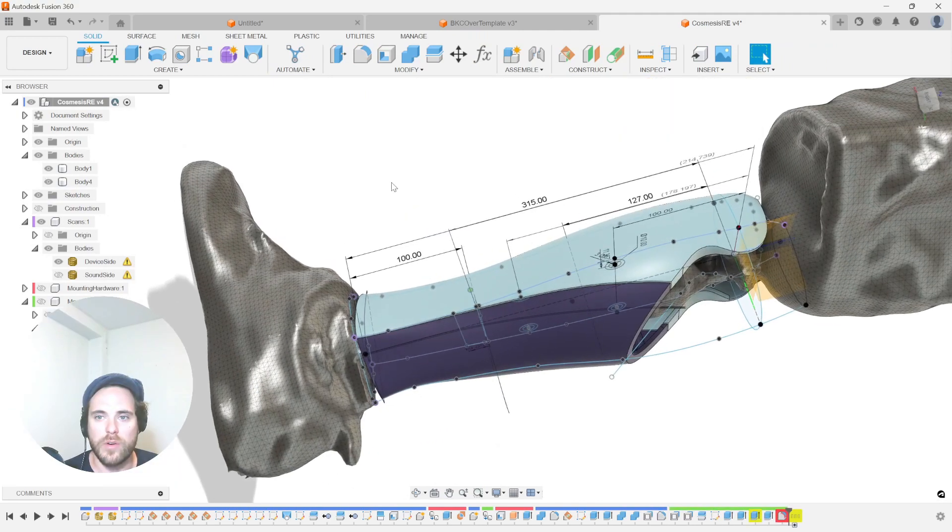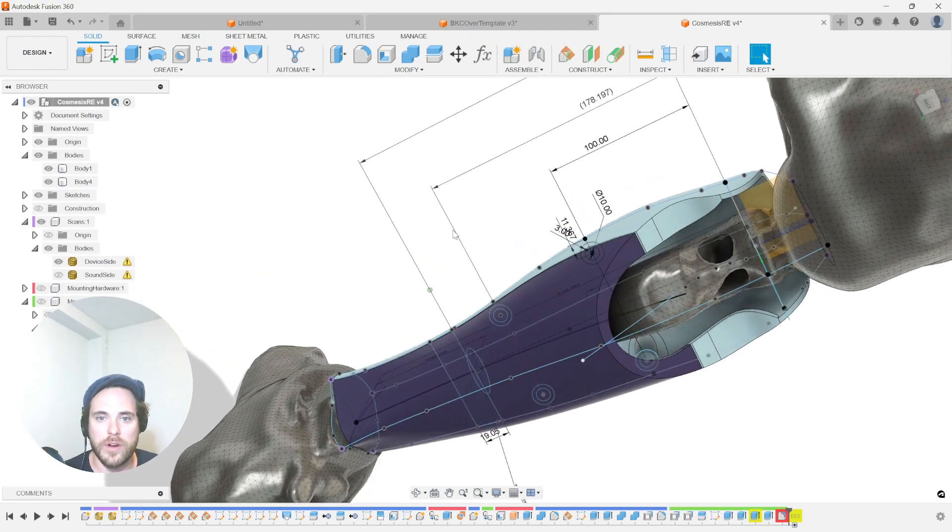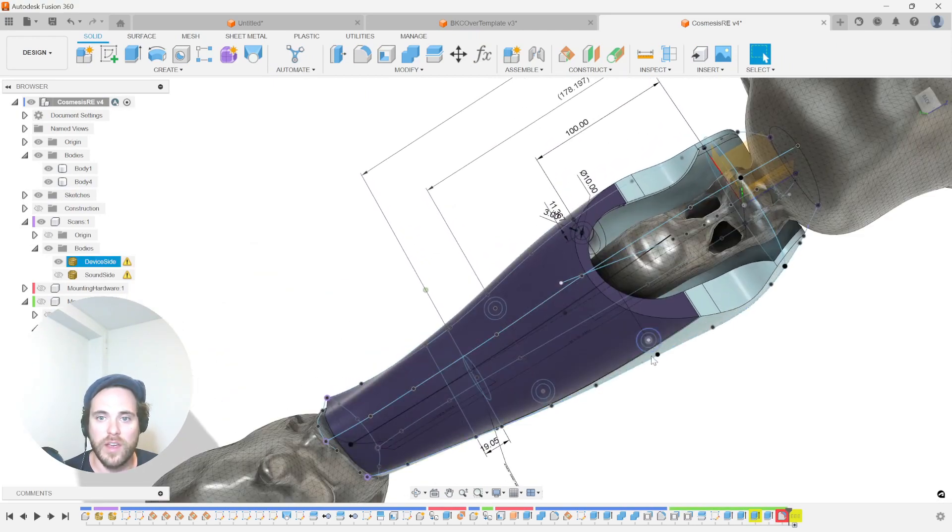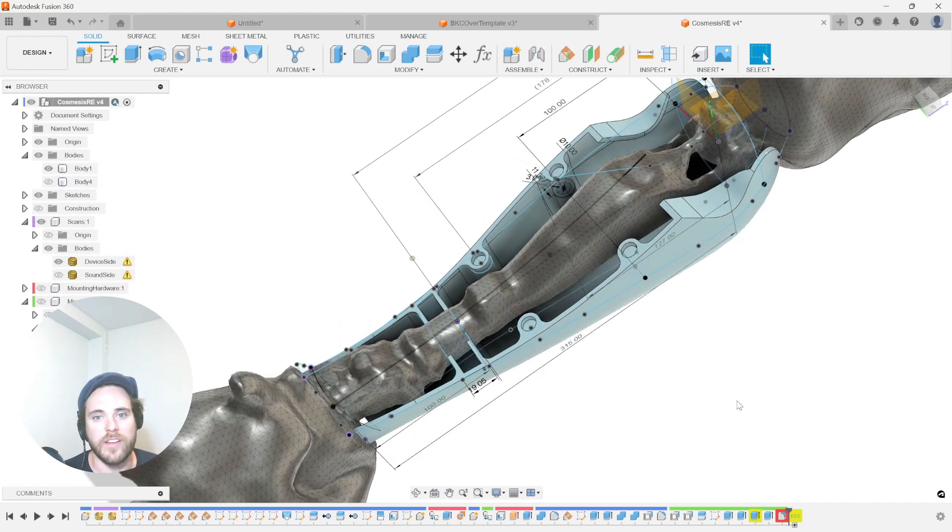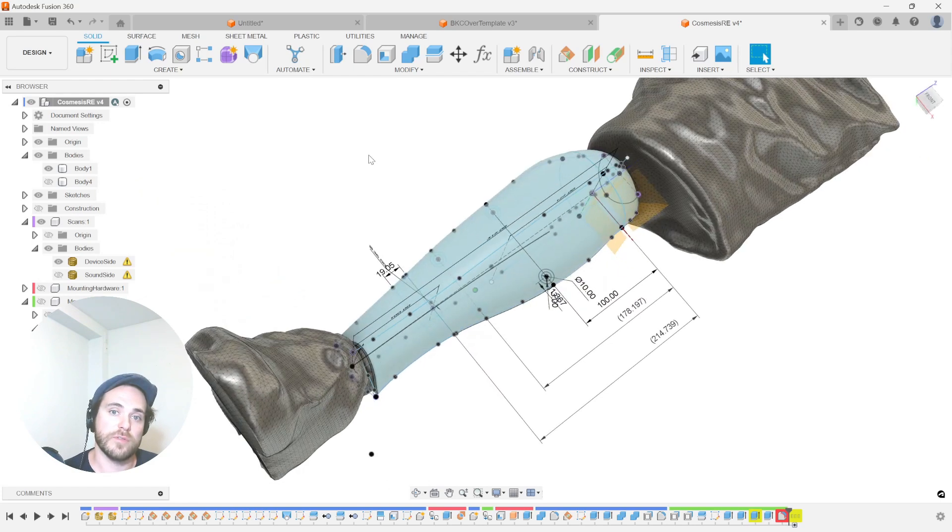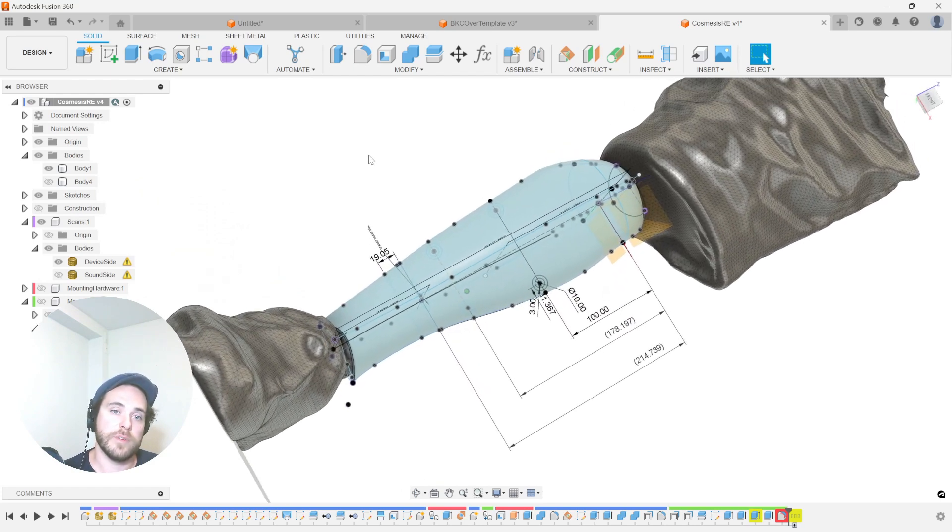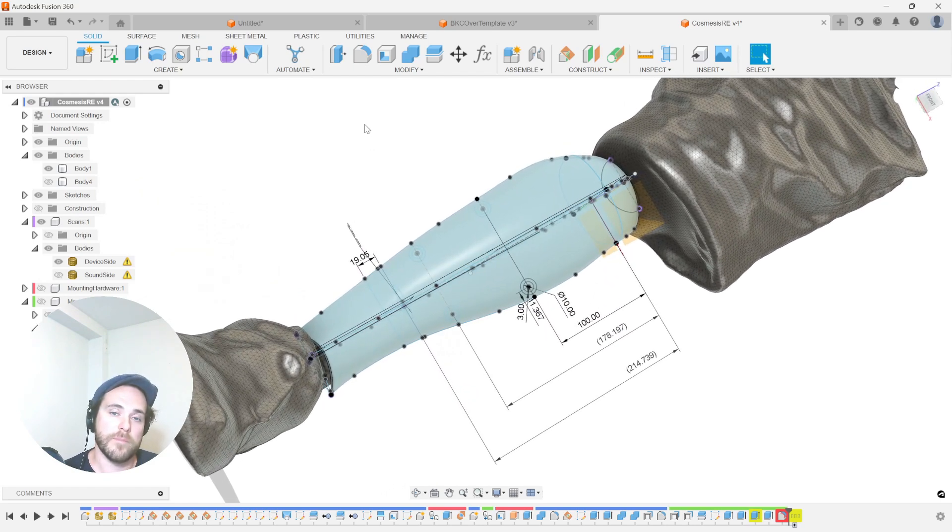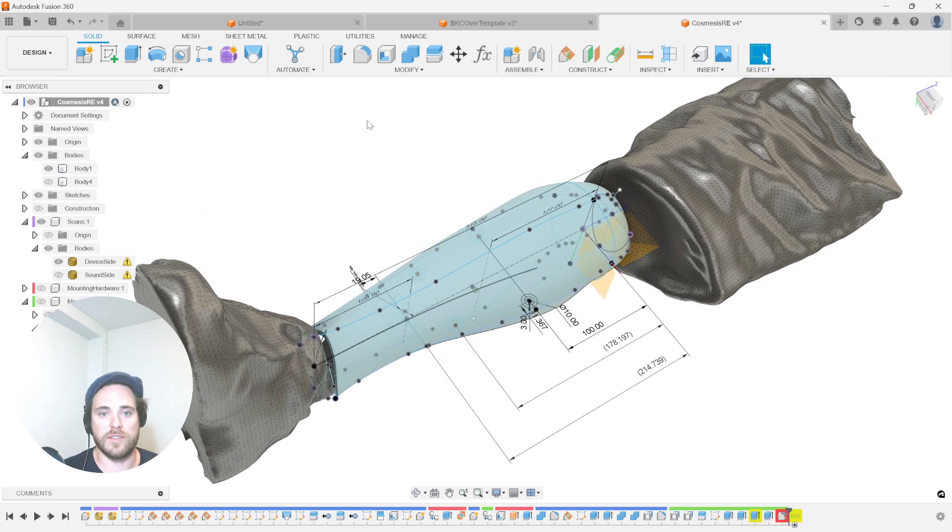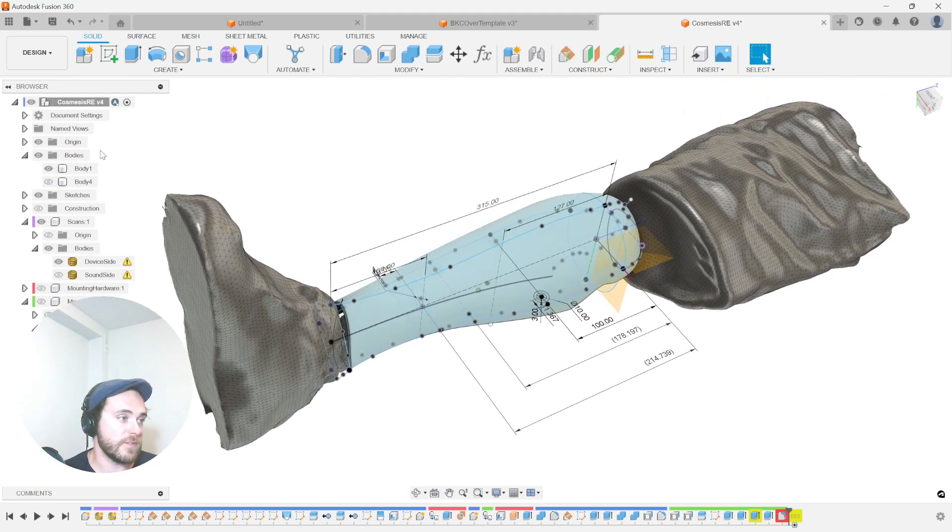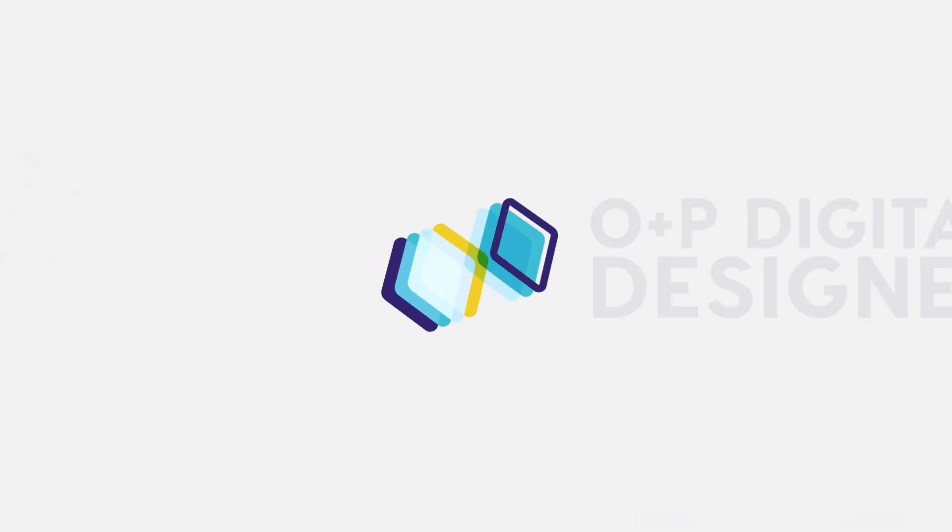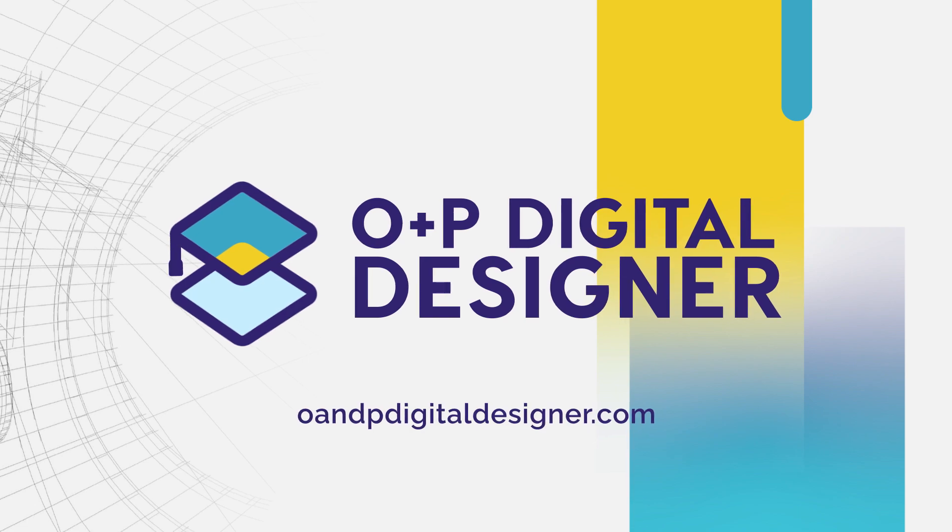Look at that. We have customized mounting placement as well as a full generation for the puck in a more conducive area. So we are now ready to create the export for this part using a template that only needed to be modified for probably less than five minutes. This is the kind of workflows that I will be teaching throughout the course. Feel free to purchase and see for yourself how this power can save you a lot of time and money using agnostic CAD software.